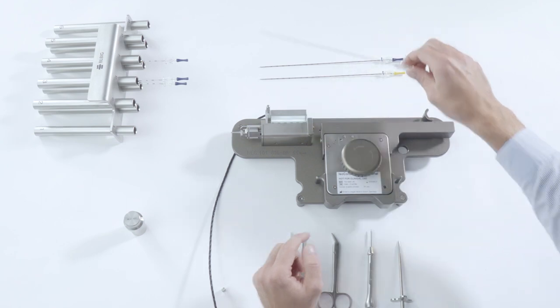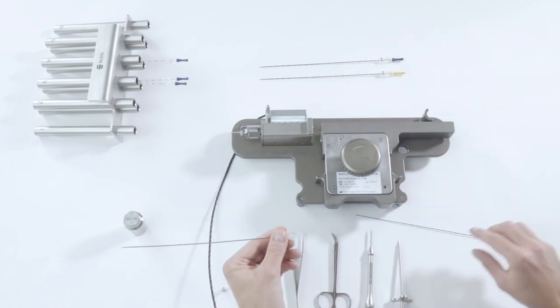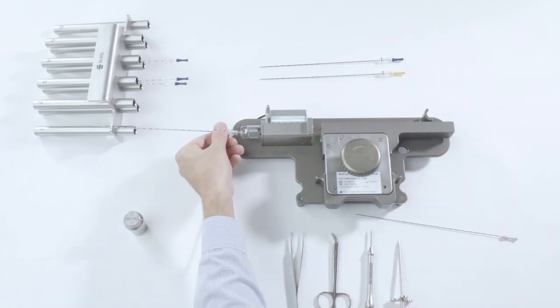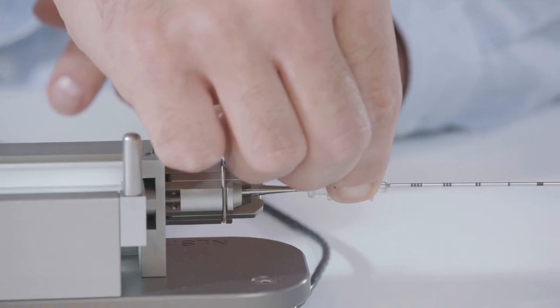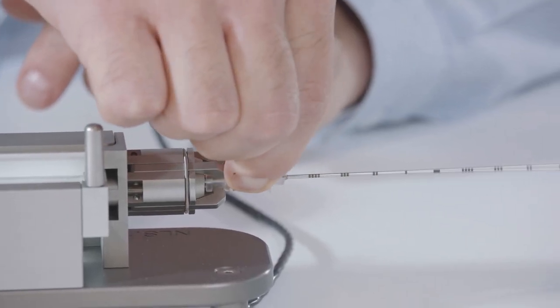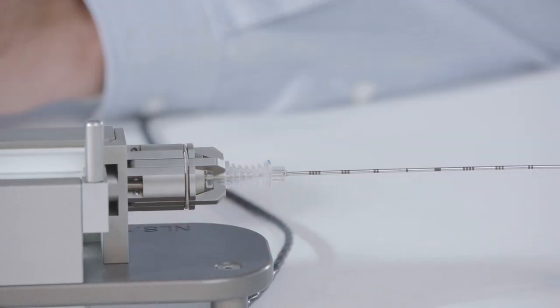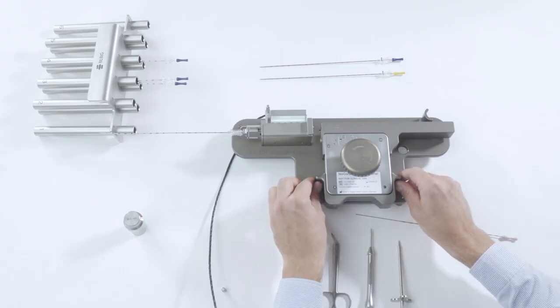You can now connect the implantation needle to the needle holder ready for loading. To do this, pass the needle adapter over the needle holder and press it into the clips.